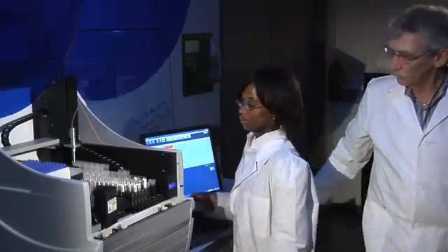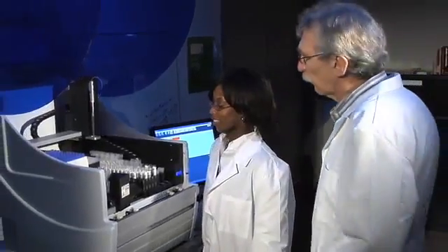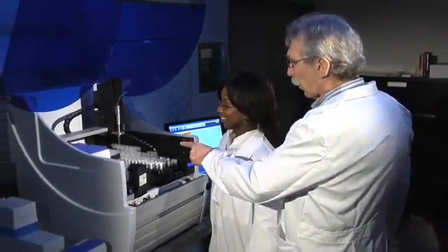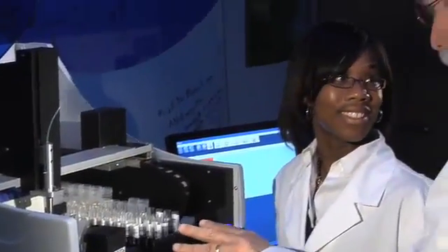The DS2 is easy to learn, easy to use, and easy to maintain, so even a novice lab tech can operate it with minimal training.